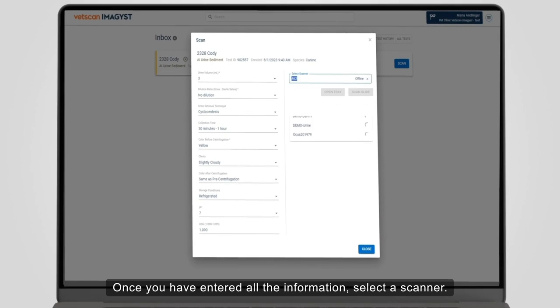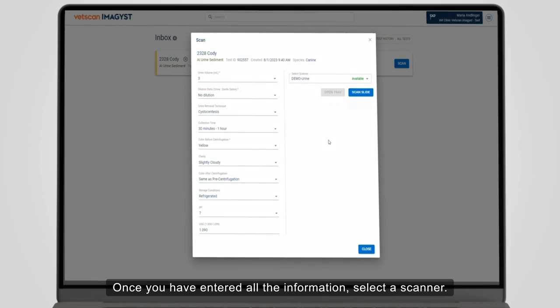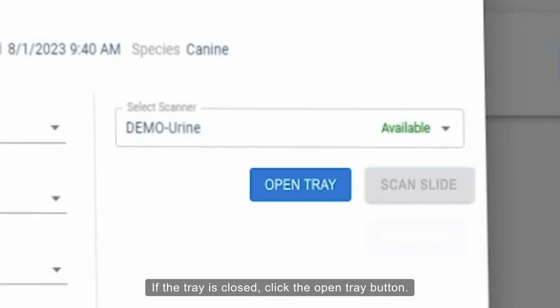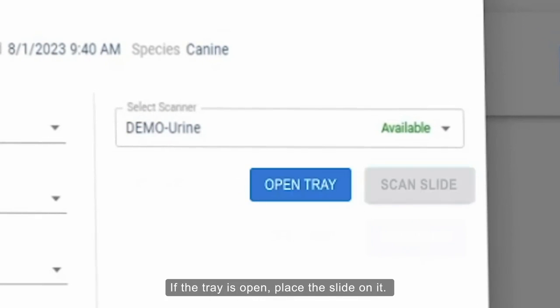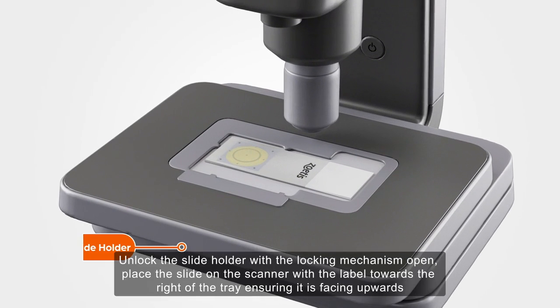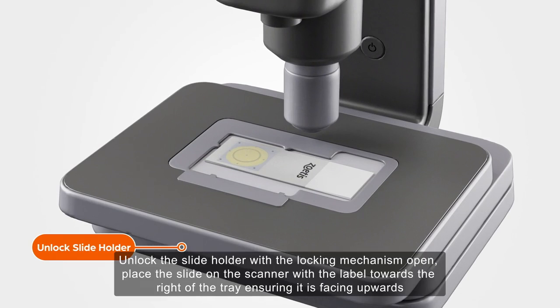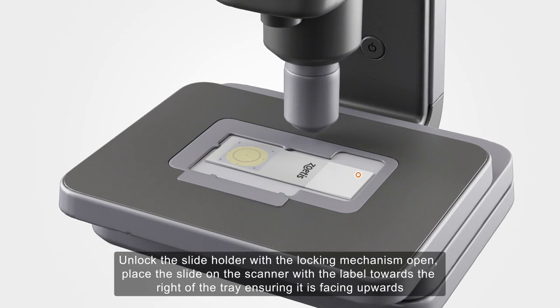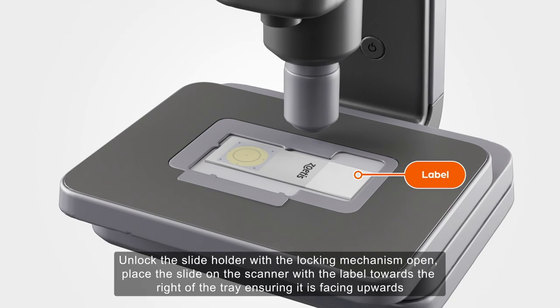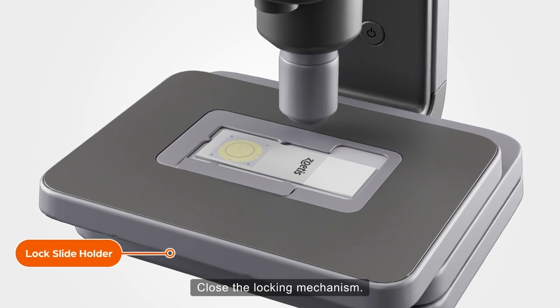Once you have entered all the information, select a scanner. If the tray is closed, click the Open Tray button. If the tray is open, place the slide on it. Unlock the slide holder. With the locking mechanism open, place the slide on the scanner with the label towards the right of the tray, ensuring it is facing upwards. Close the locking mechanism.